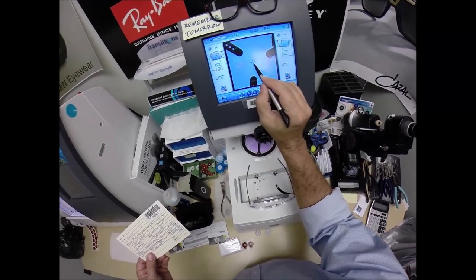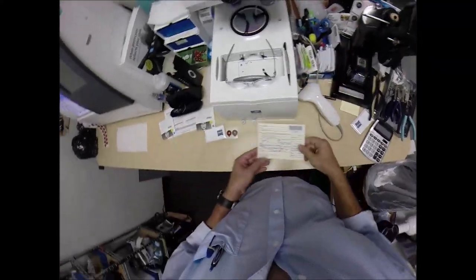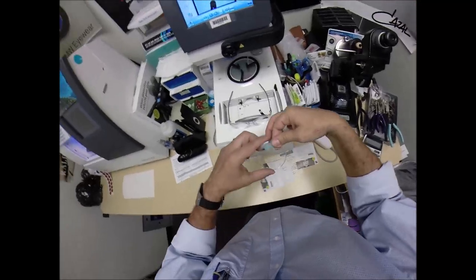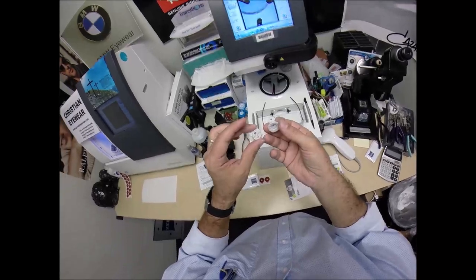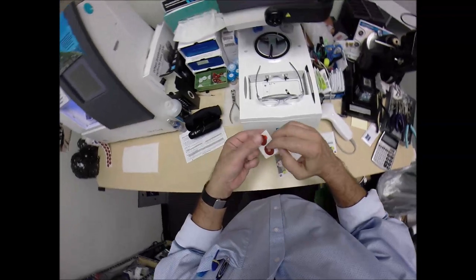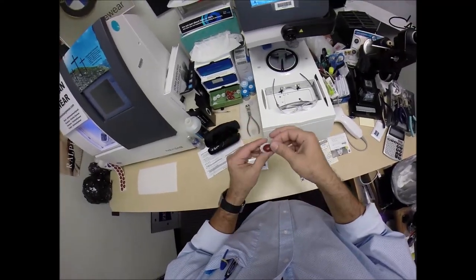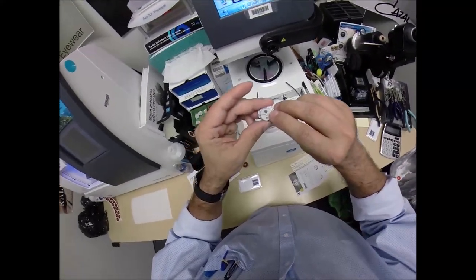The blue crosses the geometric center of your frame. Your eye is just above that and inset inside those orange crosshairs. I'm going to take your lenses out of the protective sleeves that they come in. This is marked the right lens. Place it on the platform. This is a block — or as I like to call it, Jenny from the block. I need to attach this to your lens while it is cutting. I need two double-sided adhesive stickers. The black side is the sticky side. We're going to stick this one onto the first block, do the same for the second. Pull the paper away to make the black side sticky. That silver button on the back is a magnet.